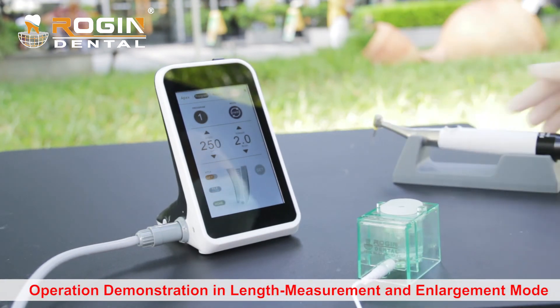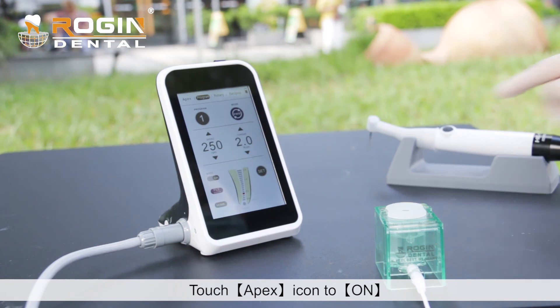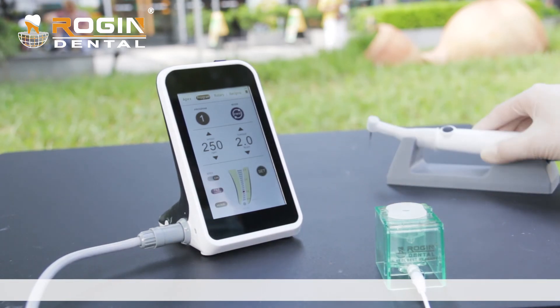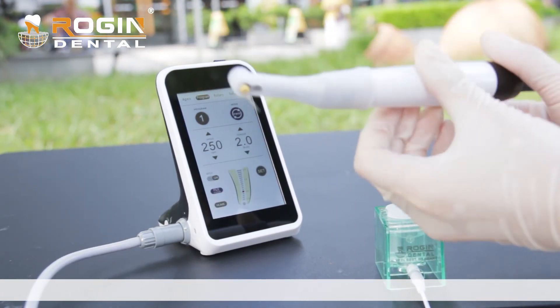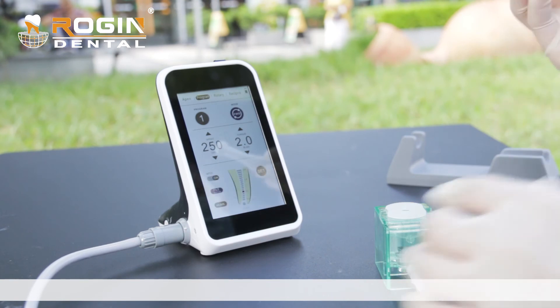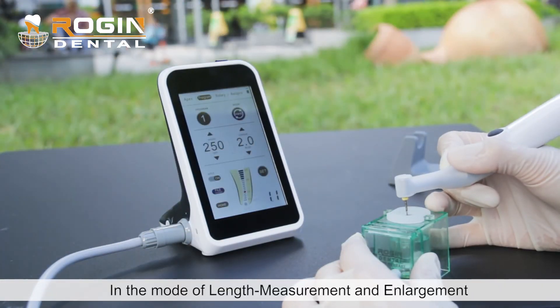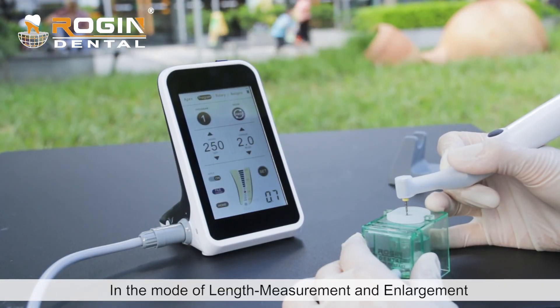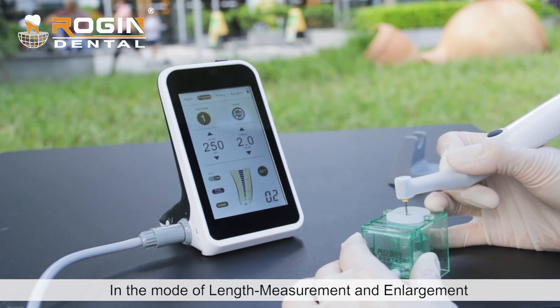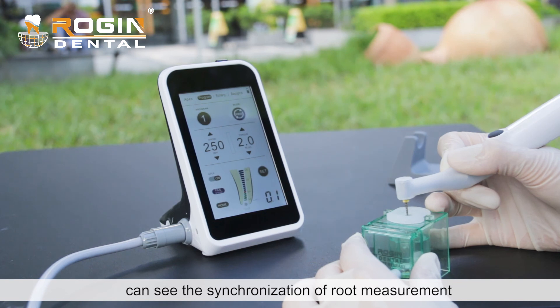In the combined mode of length measurement and enlargement, you can see the synchronization of root canal measurement on screen.